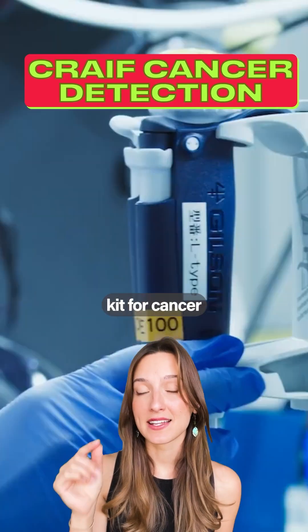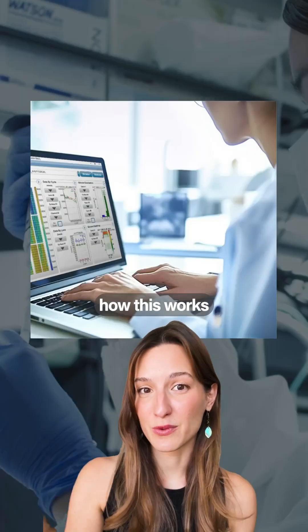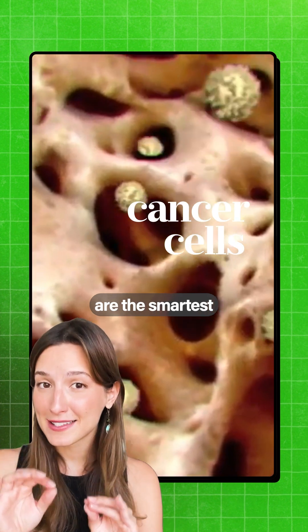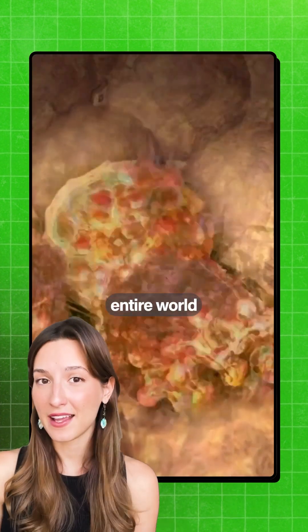This is an at-home testing kit for cancer. Let me show you how this works. Cancer cells are the smartest living system in the entire world.